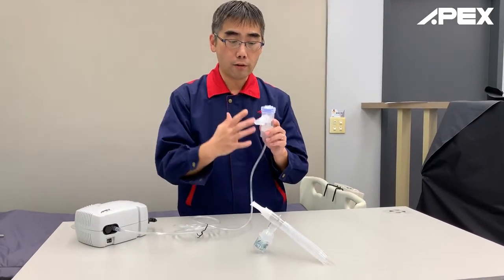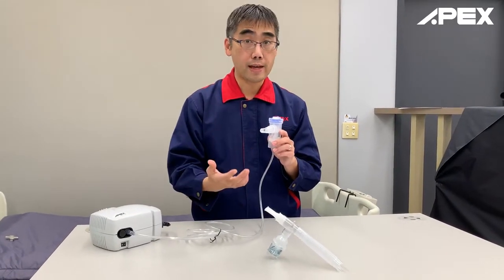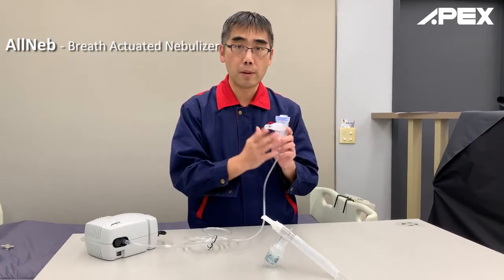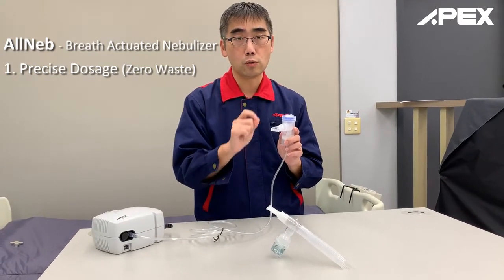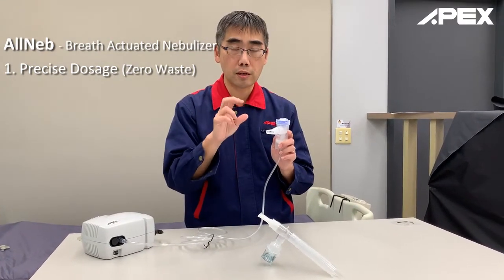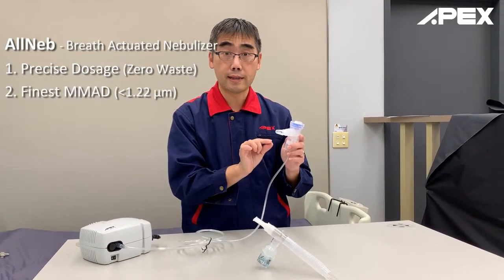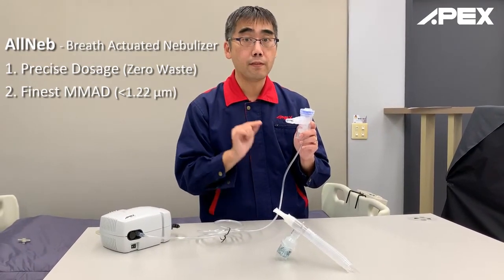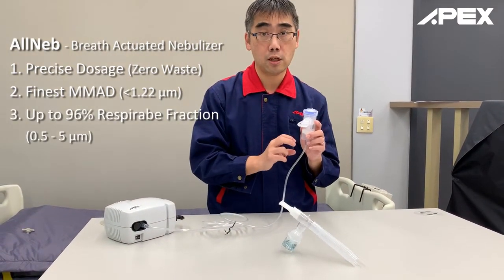It can also offer a very high respirable fraction of up to 96%. So to summarize the advantages: breath-activated technology guarantees medicine is not wasted and prescriptions can be measured precisely; the aerosol particle size MMAD is 1.22 microns — one of the lowest available; and the respirable fraction reaches up to 96%.